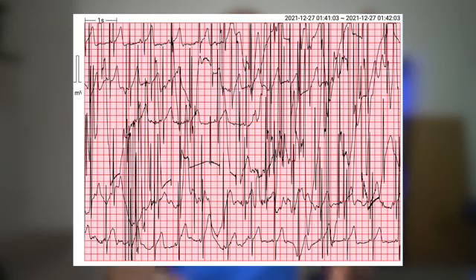I will say that I tried this first way and it didn't work very well for me. Evidently I move around during my sleep a whole lot. When I looked at the ECG report I got after using it the first night, there was a whole lot of crazy stuff going on — times where I was moving around like crazy and it really messed up the signal. So let me show you the way that worked better for me. I'm going to take this off, and now I have these two ECG patches that I can use to attach to it.